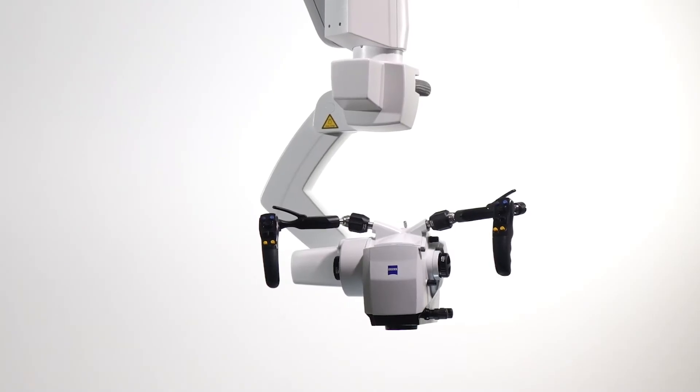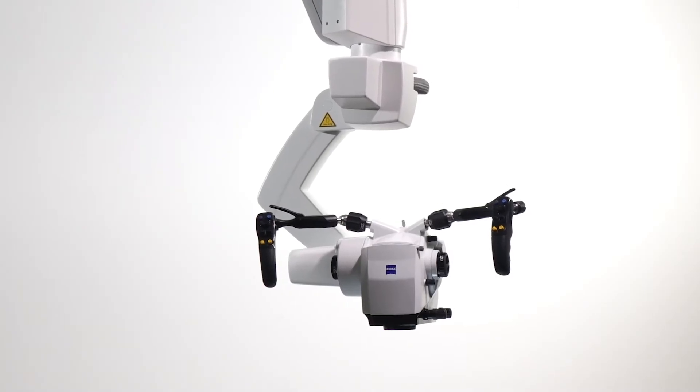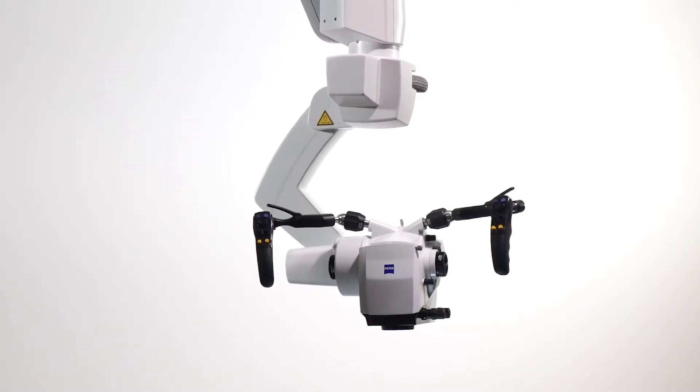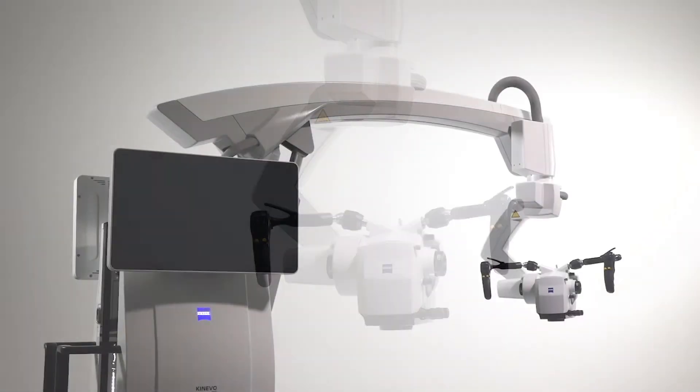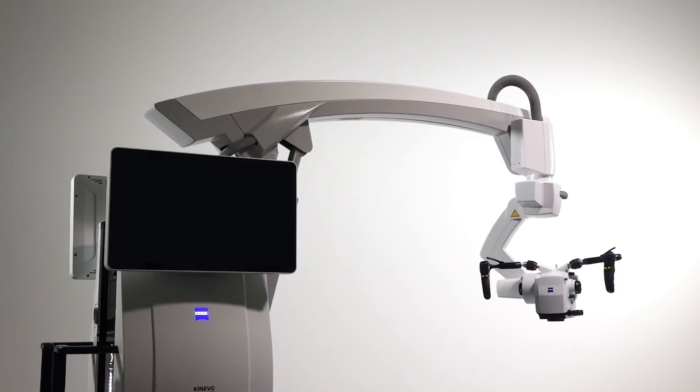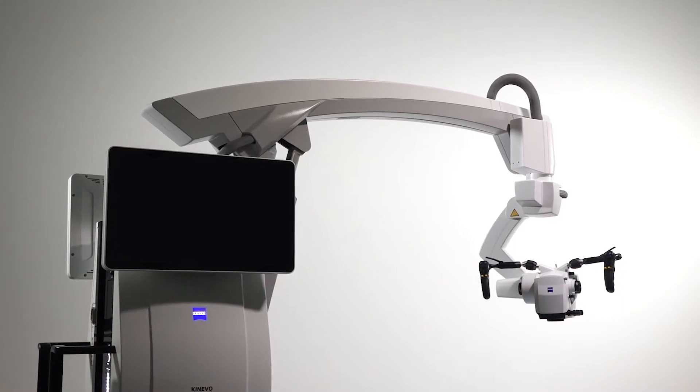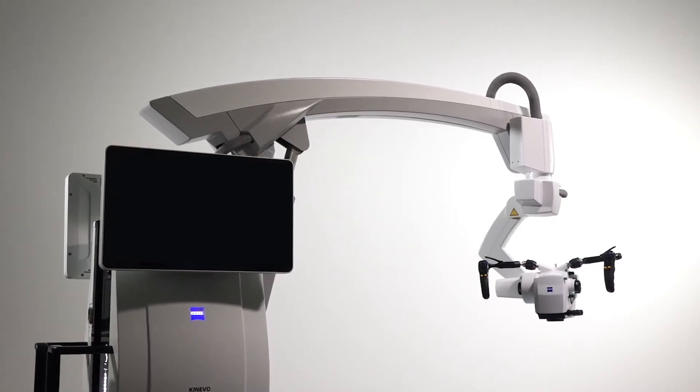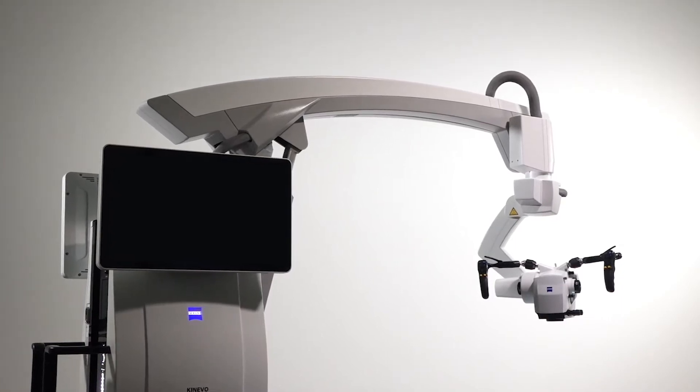Surgeon-controlled robotics enable several movement modes. Let's start with the configuration of the magnetic brakes for different movements.